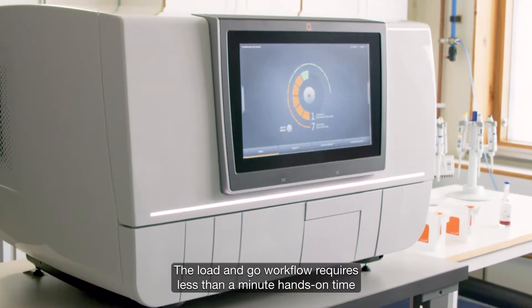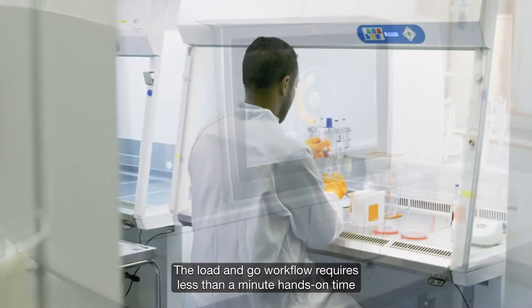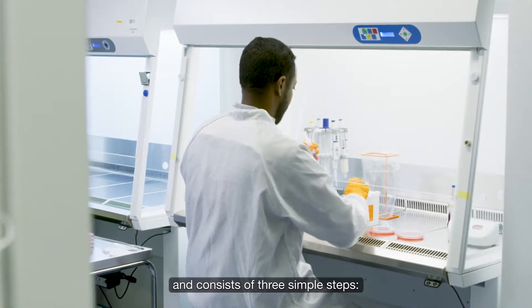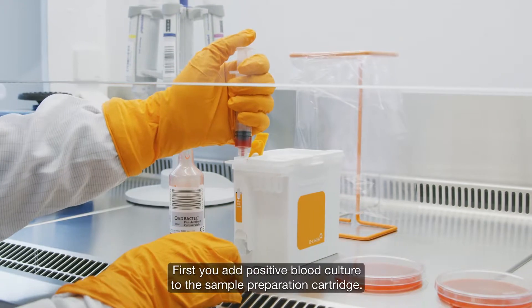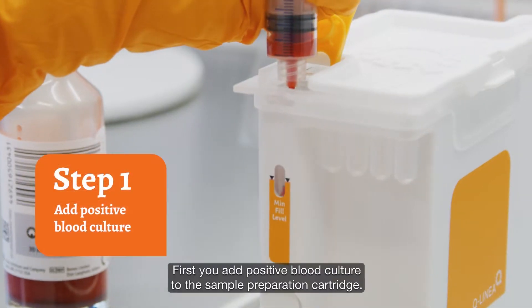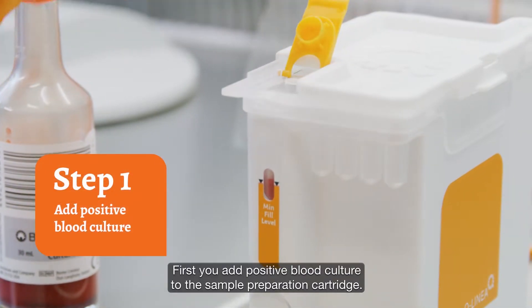The load and go workflow requires less than a minute hands-on time and consists of three simple steps. First, you add positive blood culture to the sample preparation cartridge.